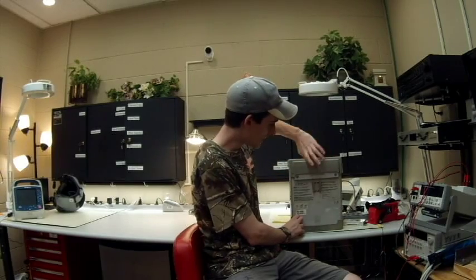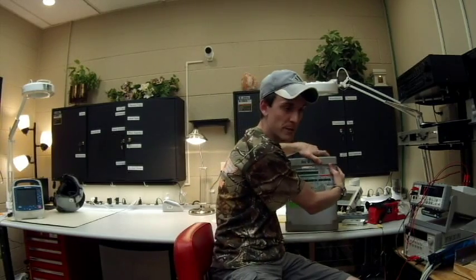The internal battery is right in the back. There are two different kinds of PMs on it: a 10K PM done every two years, and a 30K PM done every six years.